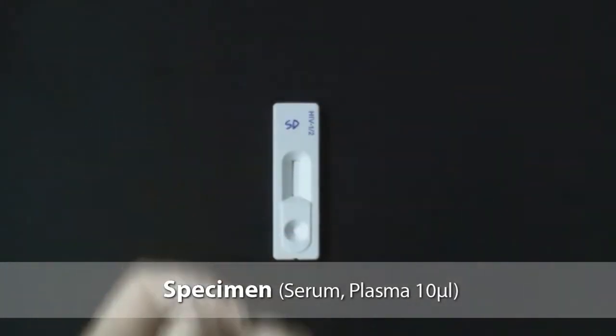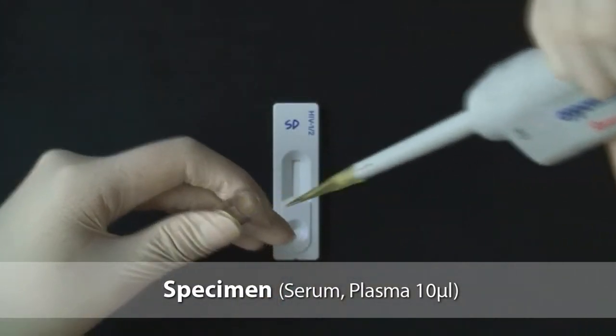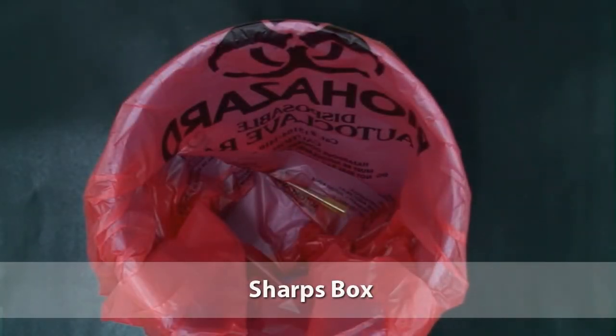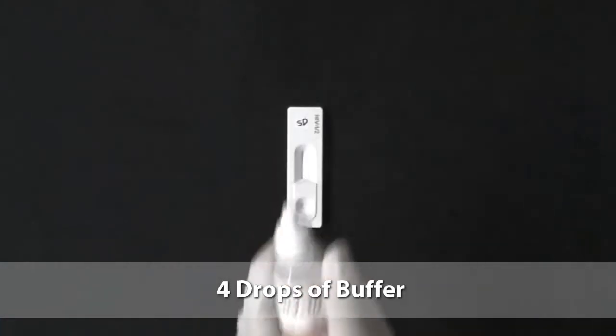Using a micropipette, take 10 microliters of serum or plasma and put it into the round sample well. Discard the used yellow tip immediately in the sharps box. Add 4 drops of buffer into the same round well.